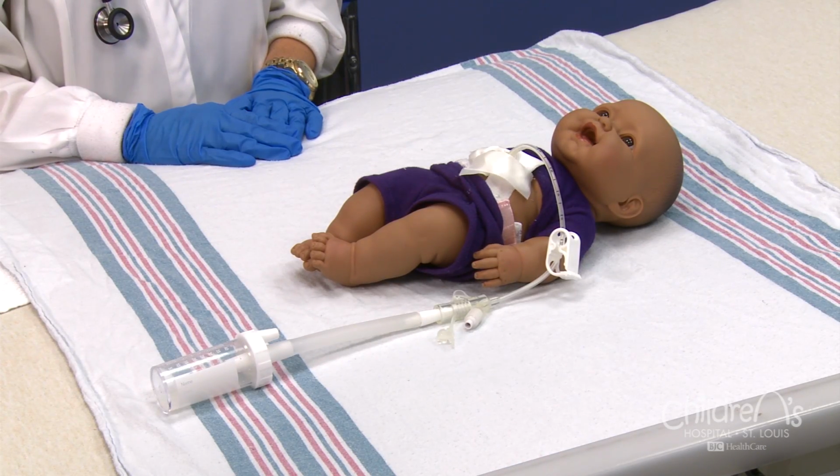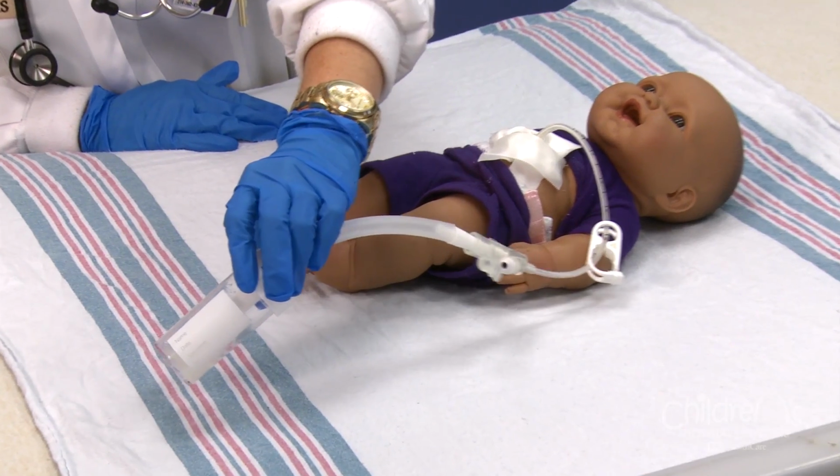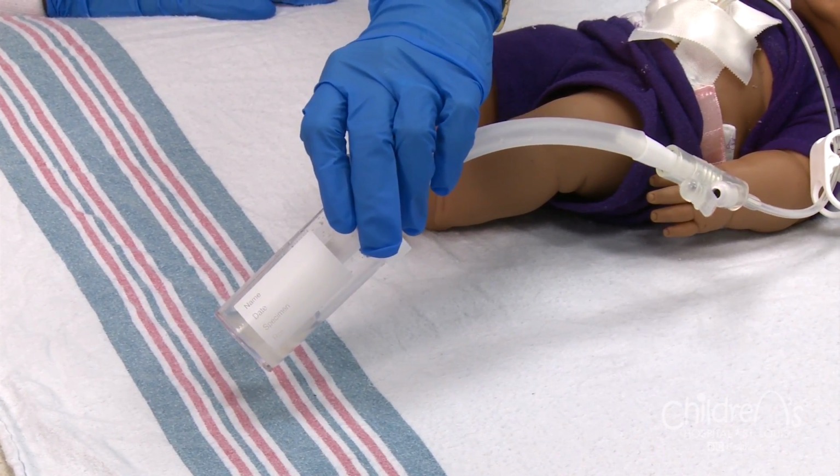Even without eating or drinking, the stomach normally makes juices. Draining these fluids prevents the stomach from getting too full after surgery. Usually, your child will not take in fluids by mouth or by the G-tube for the first 12 to 24 hours after surgery. This helps relieve nausea after anesthesia and allows the gastrostomy tract to begin healing. It will take about 6 to 8 weeks for the tract and the surrounding tissues to heal completely.